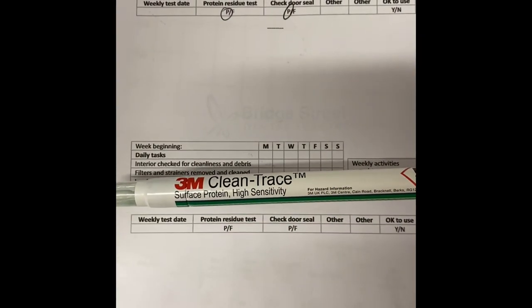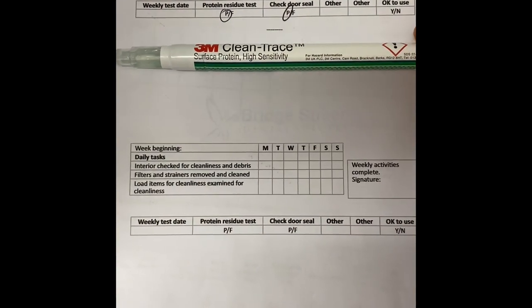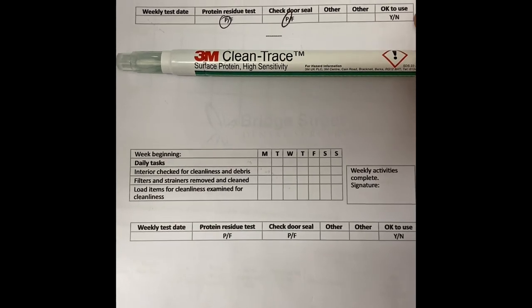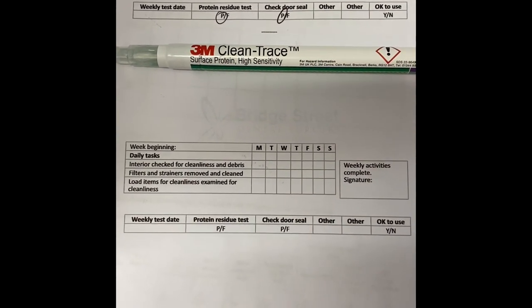Complete the weekly washer disinfector checklist and tape the Clean-Trace pen to the log sheet.